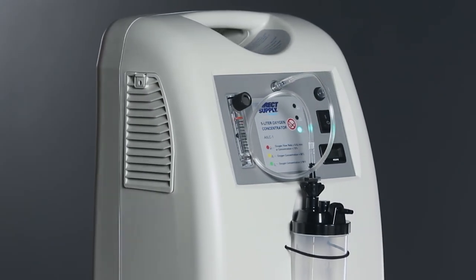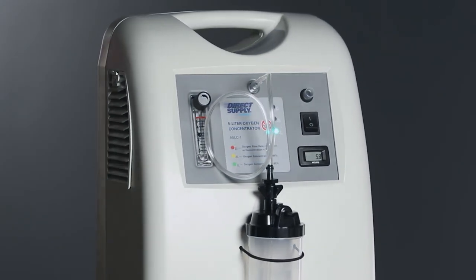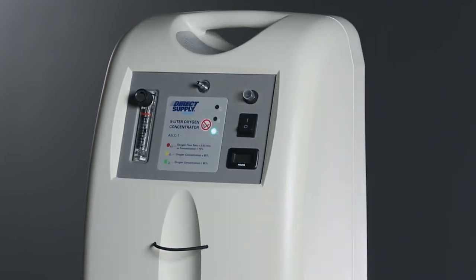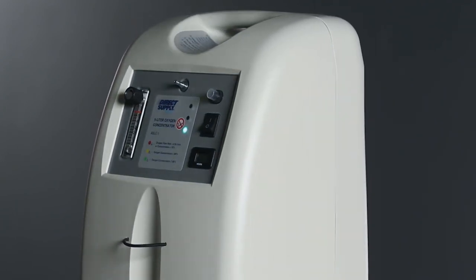Now that your oxygen concentrator has been inspected and the cannula is attached, either with or without a humidifier bottle, your unit is ready to be used as prescribed by your resident's doctor.